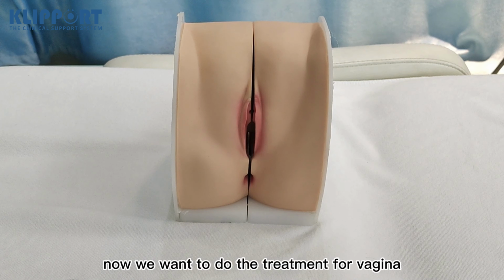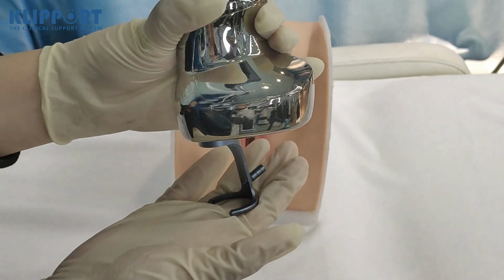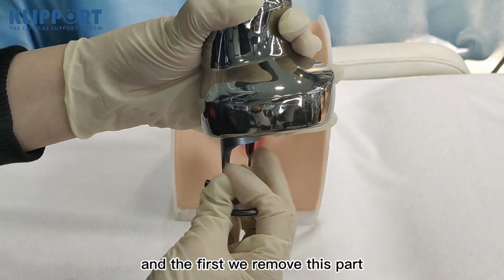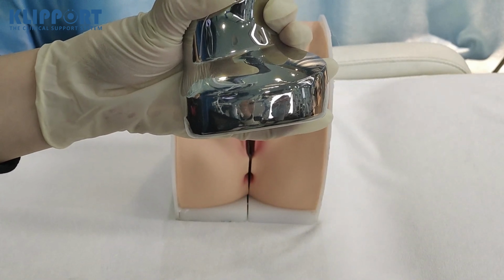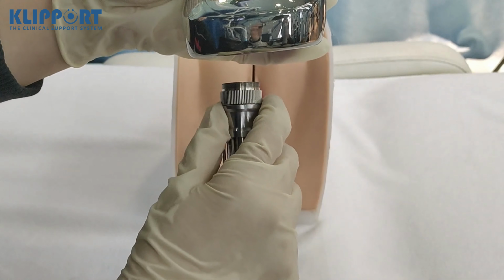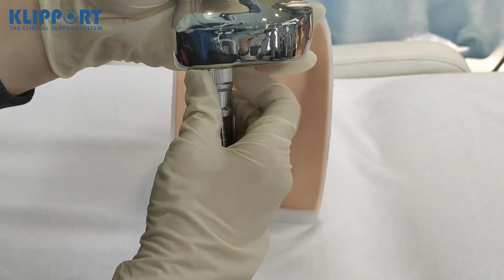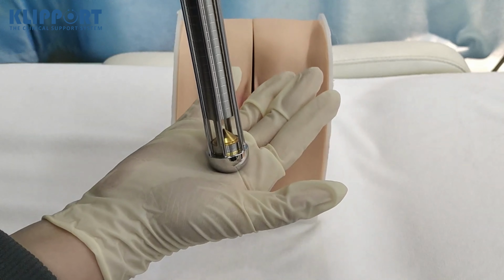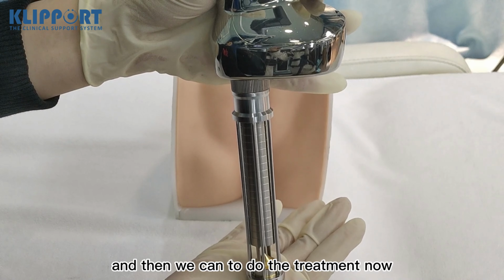Now we want to do the treatment for the vagina. First, we need to change the handle. Here is the fractional handle. And first, we remove this part. Rotate and take it off. Then we need this one. And hold this part to rotate it. And now we finish installing the handle. And then we can do the treatment now.